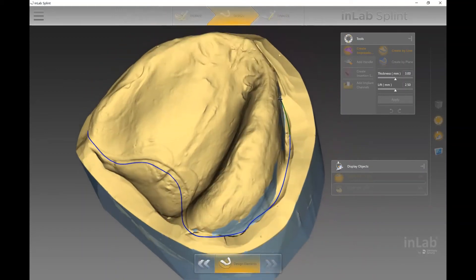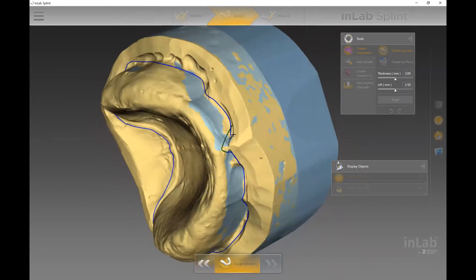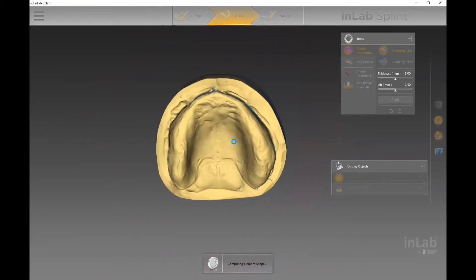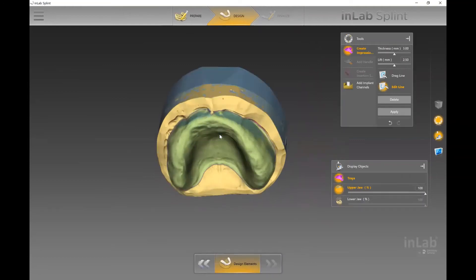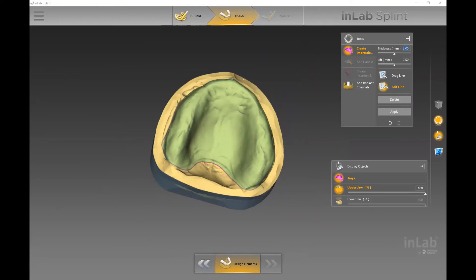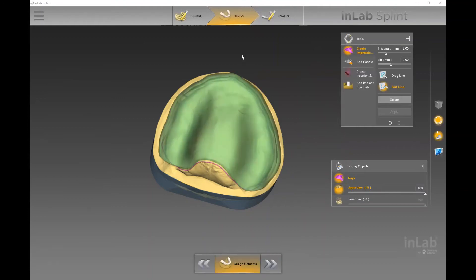Once the border is determined, you'll want to set your thickness and lift. Thickness refers to how thick the actual tray will be; lift refers to how much space you're giving for impression material — essentially the space between the tray and the patient's ridge. That's an important parameter. If you don't apply the parameters on the right-hand side after selecting your millimeter values, you'll end up with a really flat tray. If you're trying to place a handle and it doesn't look like a tray, it's likely because you haven't hit 'Apply' for those parameters.